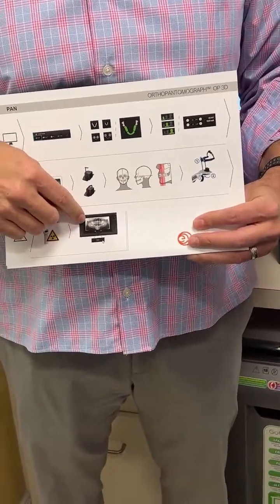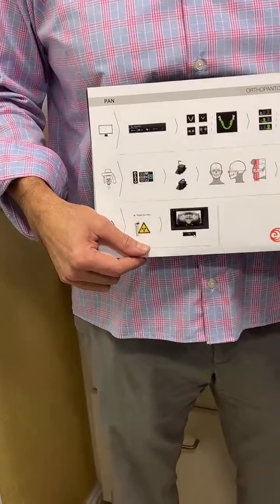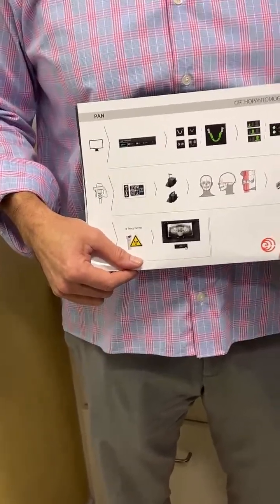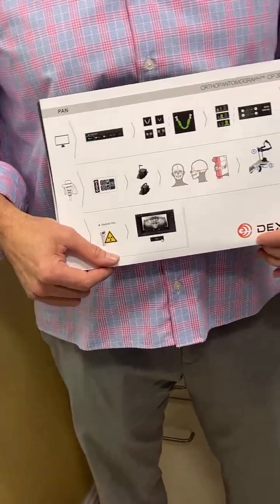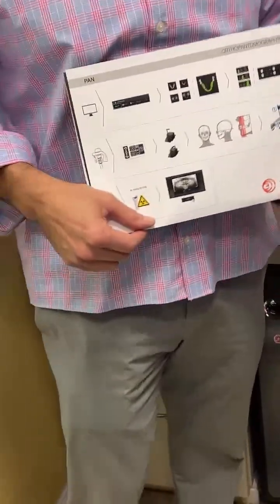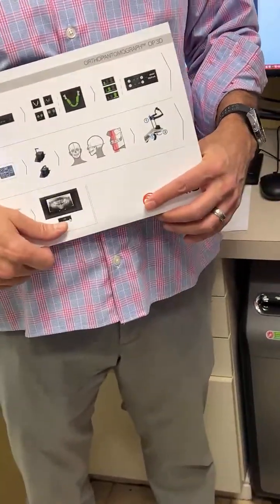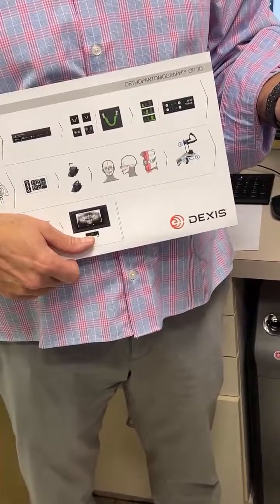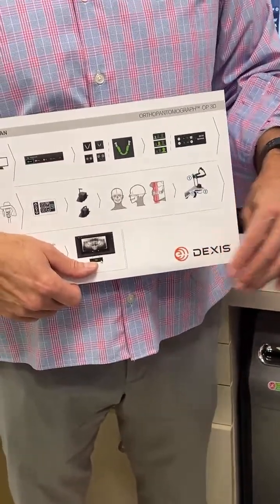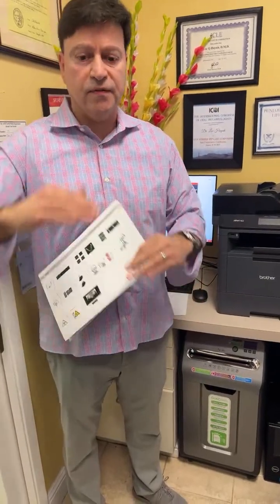Can you walk us through, if I'm going to do a full mouth rehab or full mouth ortho case? So I might be doing 3D full mouth, but low dose. I don't want too much. I just want to have an idea. Then you would choose your 9 by 11, and you would choose 3D. But the first thing you might take is a pano, which is 15 centimeters by 30.